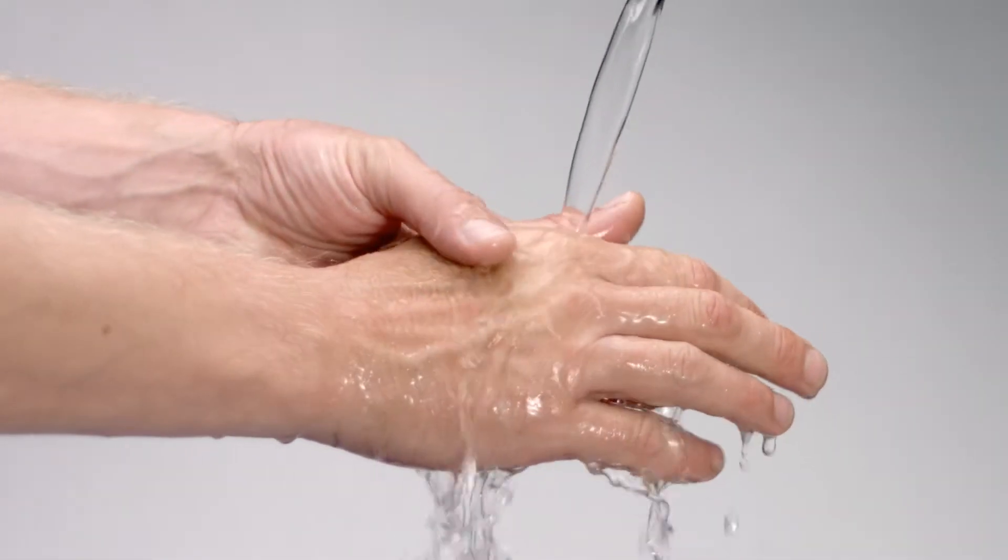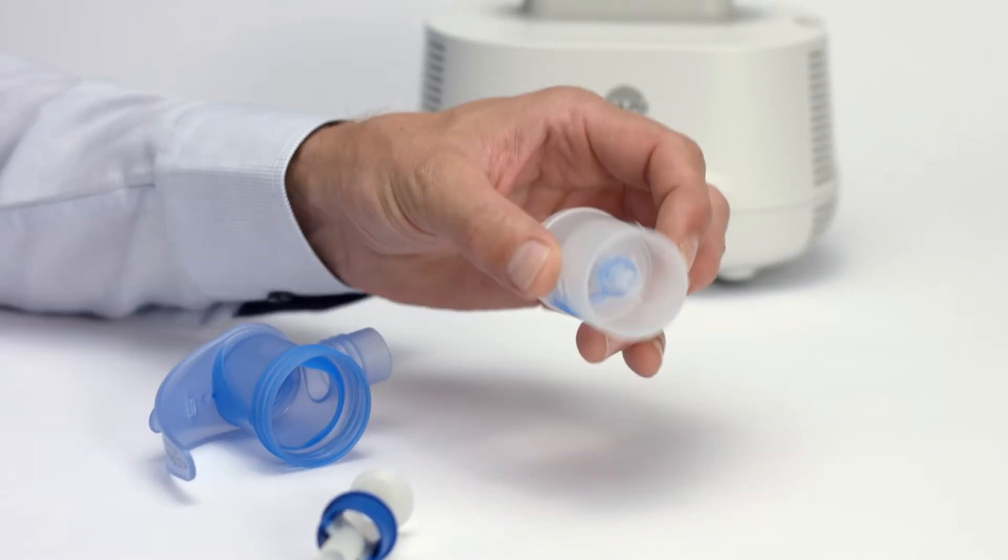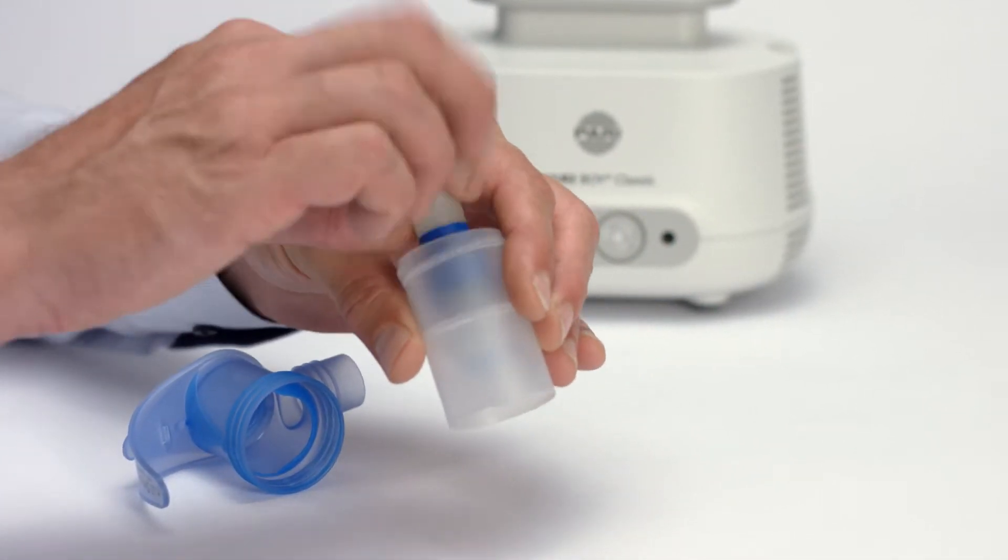Wash your hands thoroughly before each inhalation session. Assemble all parts.